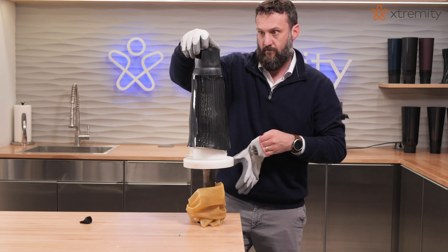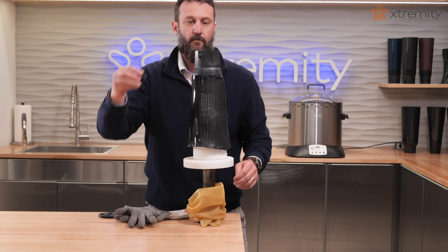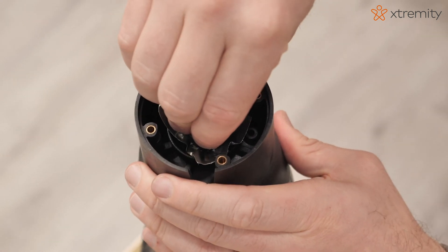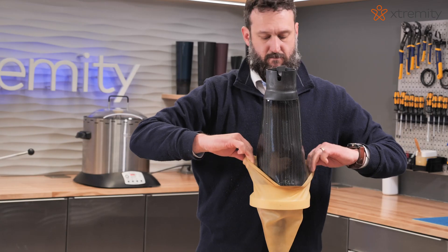Ensure distal contact between the limb model and the distal end pad injection valve. Place a piece of tape over the hole in the injection valve, then place the valve key over the tape to create a seal and apply vacuum.